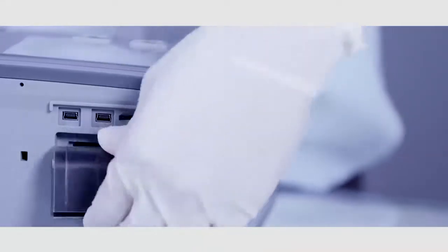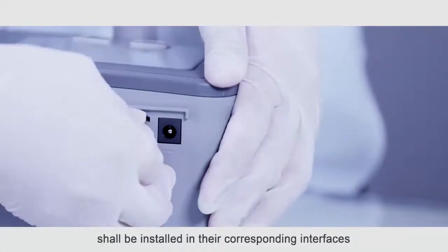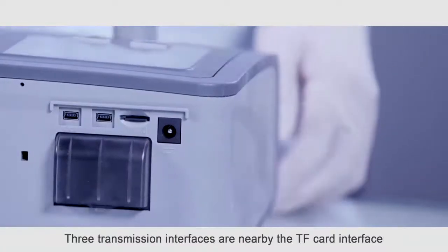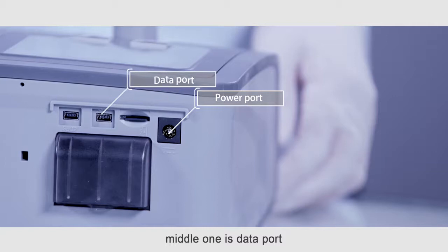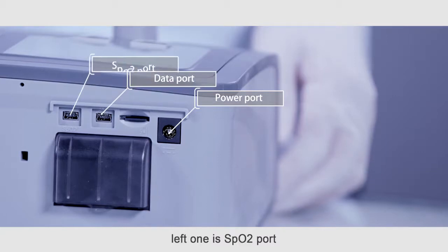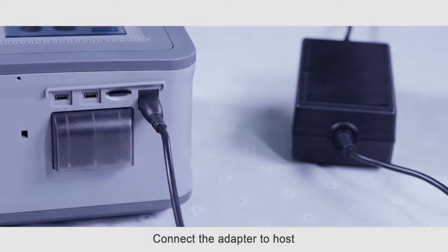Before using, the air filter and TF card shall be installed in their corresponding interfaces. 3 transmission interfaces are near the TF card interface. The right one is the power port. The middle one is the data port. The left one is the SPO2 port. Connect the adapter to the host. The machine is powered on.